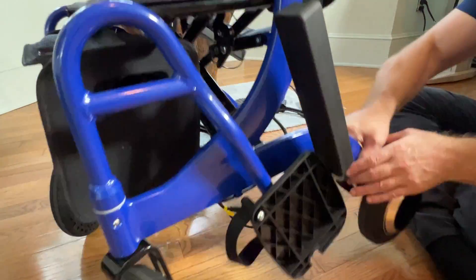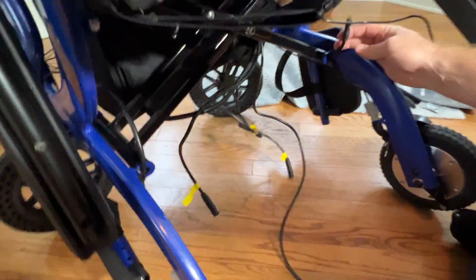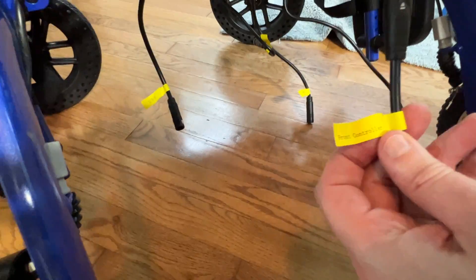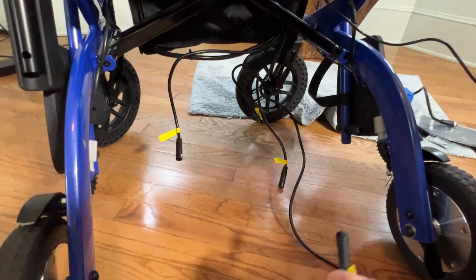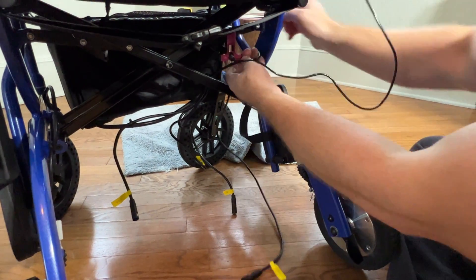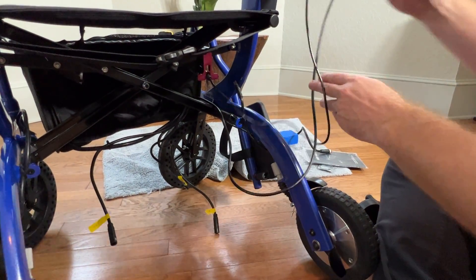Let's take a look at the actual back of the device — I've got a bunch of wires and they're all labeled. So basically this is the one that would be for the front controller. By process of elimination I'm going to get things out of the way to be efficient, and I'm going to loop this in a way that it doesn't get pinched when it's folding up — looping this through the armrest.